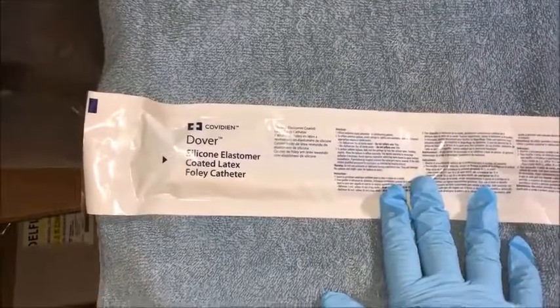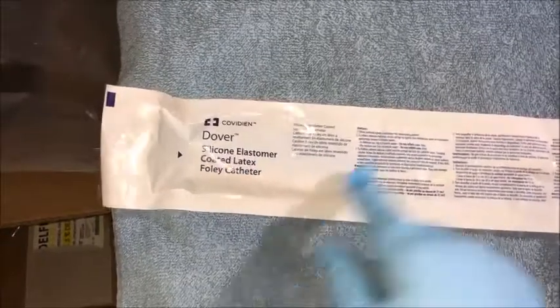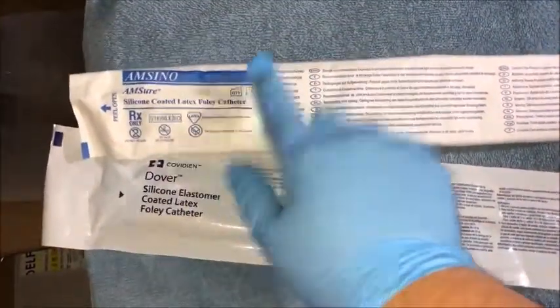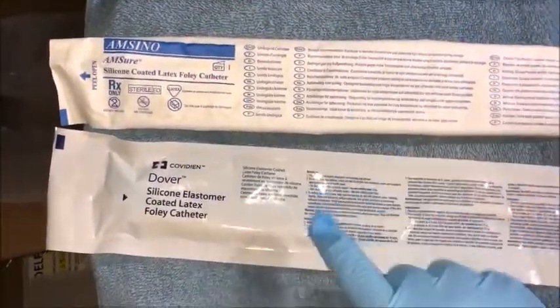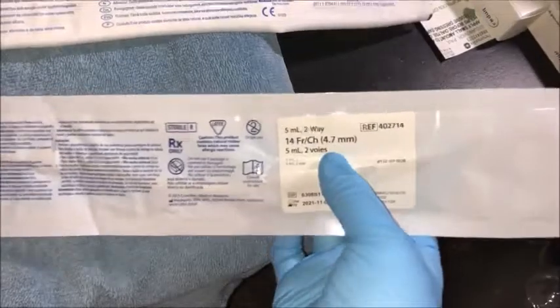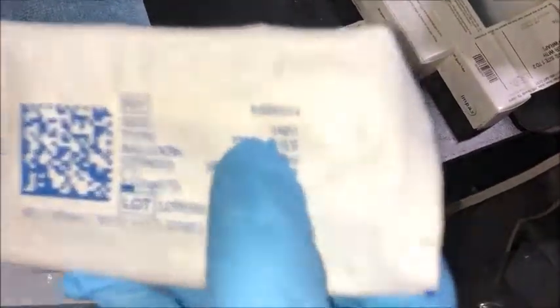Let me show you the packaging. This is one type of catheter — and that's actually why I'm wearing gloves, because it's latex and I am allergic to latex. Here is another brand. Like I said, they are the same size: 14 French. You can see it right there on this one, and over here you can also see 14 French. So this is just the packaging.